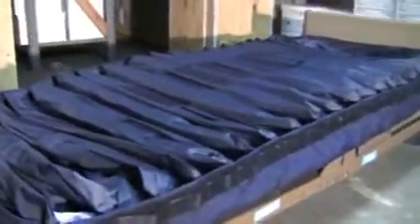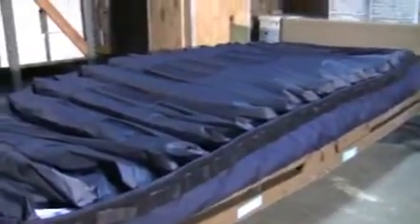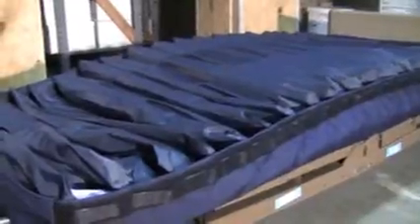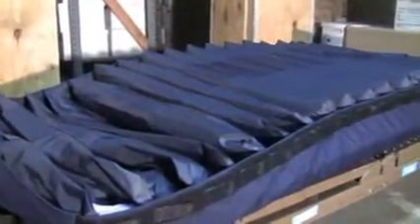For initial inflation of the low air loss mattress, simply power on your air control unit by pressing the on button. After you have activated air pressure to your low air loss mattress, you may start to see it inflate. In order to speed up the process of initial inflation, you may activate your max inflate button on your air control unit, which will help inflate the mattress quicker.